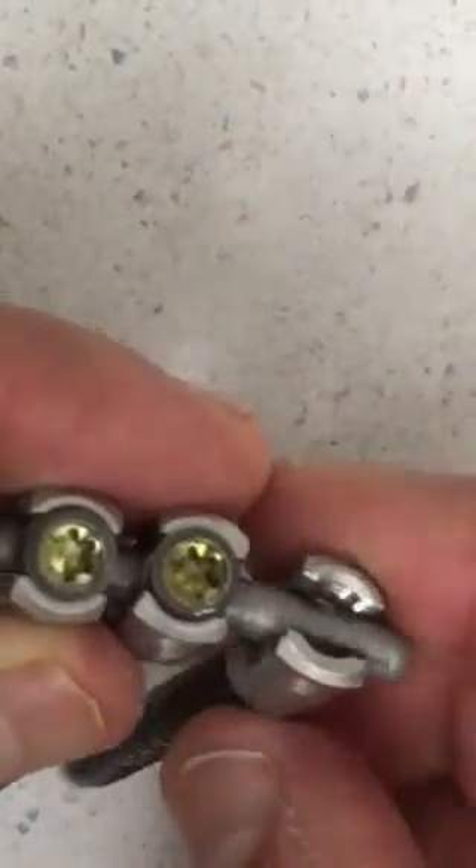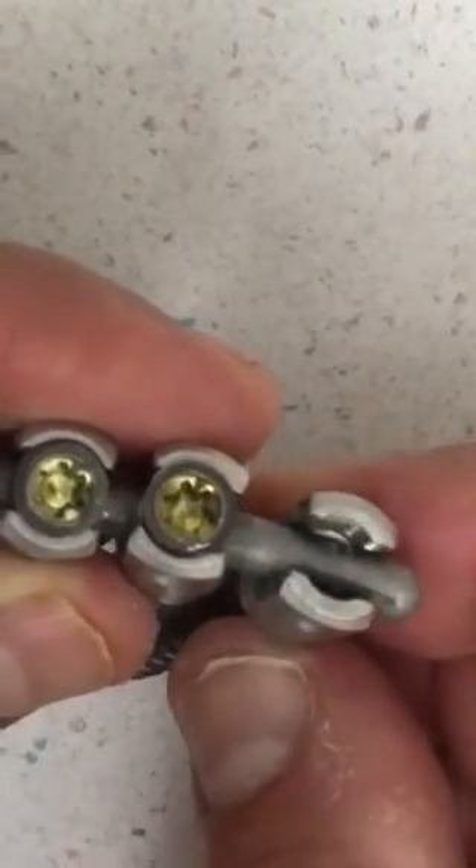It's the same exact male screwdriver, but the problem is it's not easy getting this screw out unless you have the threaded screwdriver which threads into the screw itself — it's sort of a double screwdriver. It's a very simple, straightforward removal process. You could get away with just the one Star of David screwdriver, but it's best if you also have the double threaded screwdriver that threads into the screw.